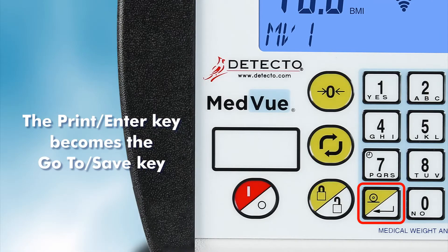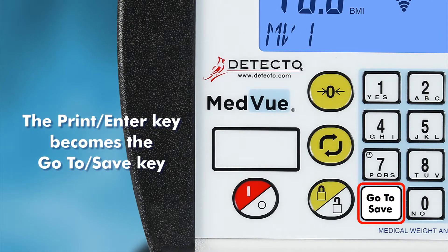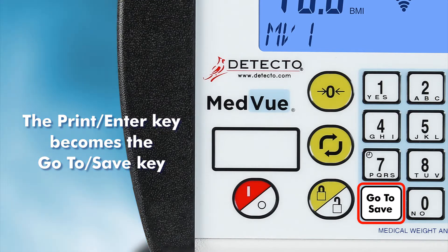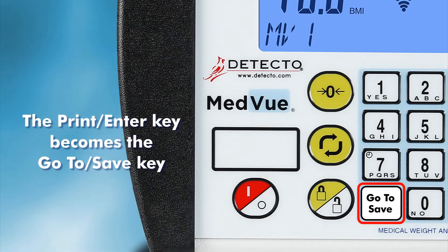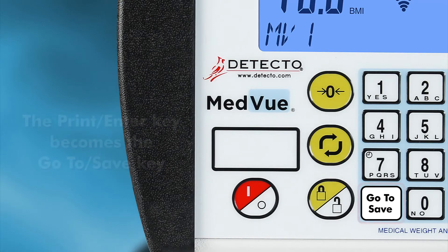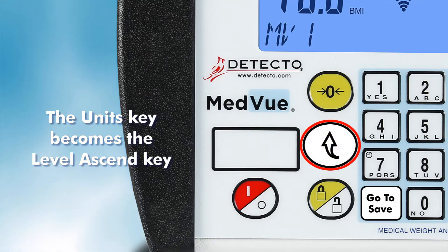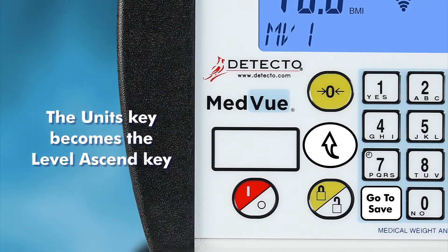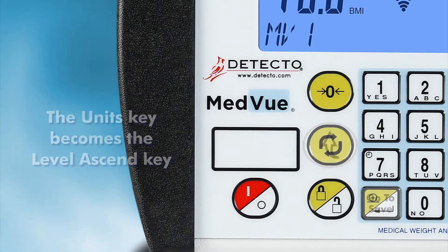The Print Enter key becomes the Go To Save key and is used to select menus and parameters. If the operator is at the parameter level, this will store the currently displayed parameter value and then proceed to the next parameter in that menu list. The Units key becomes the Level Ascend key and, when used at the parameter level, returns you to the menu level. If used at the menu level, it returns the indicator to normal operation for measurement.